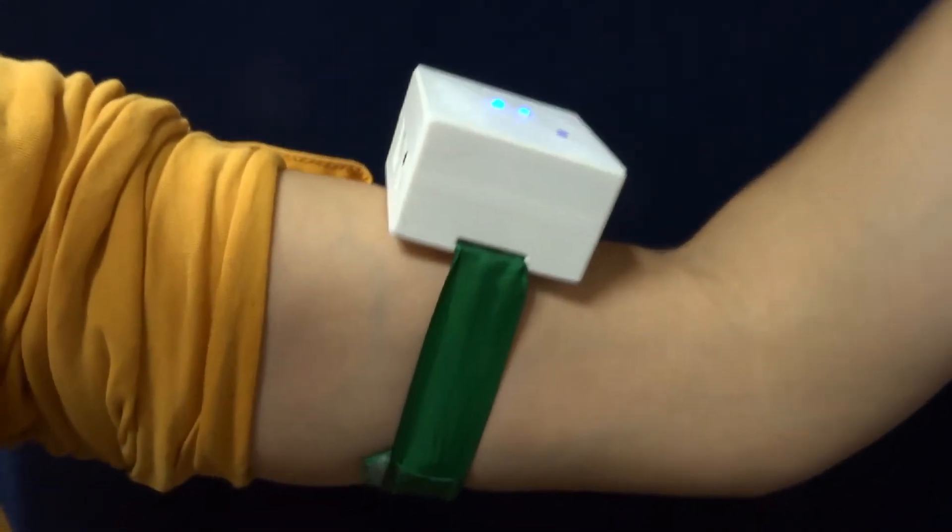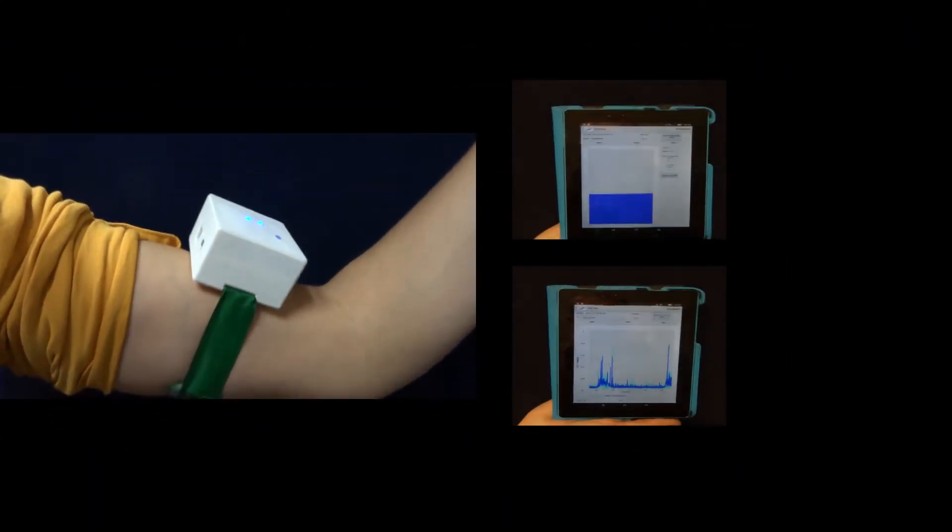The mobile application analyzes, visualizes, and stores received signals and as such provides feedback to the user to correct the exercises.